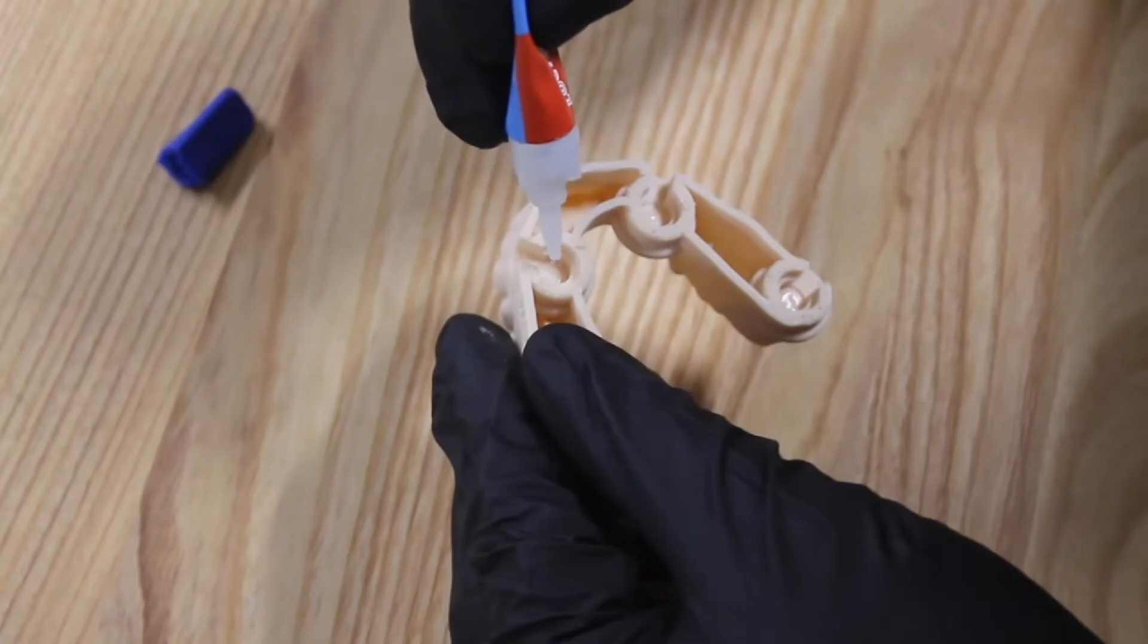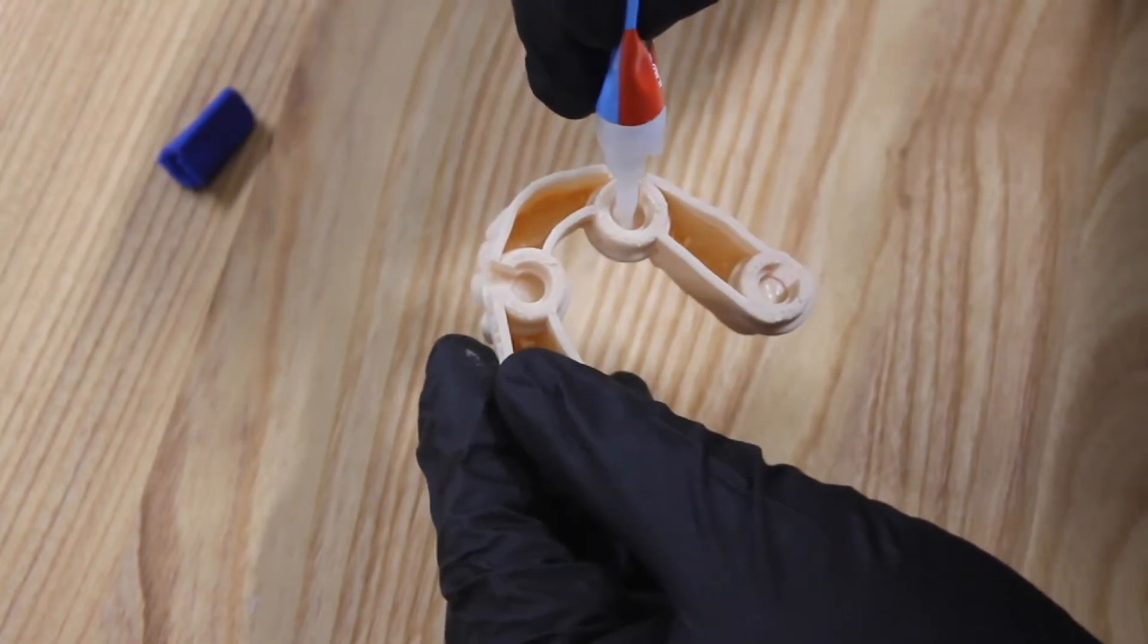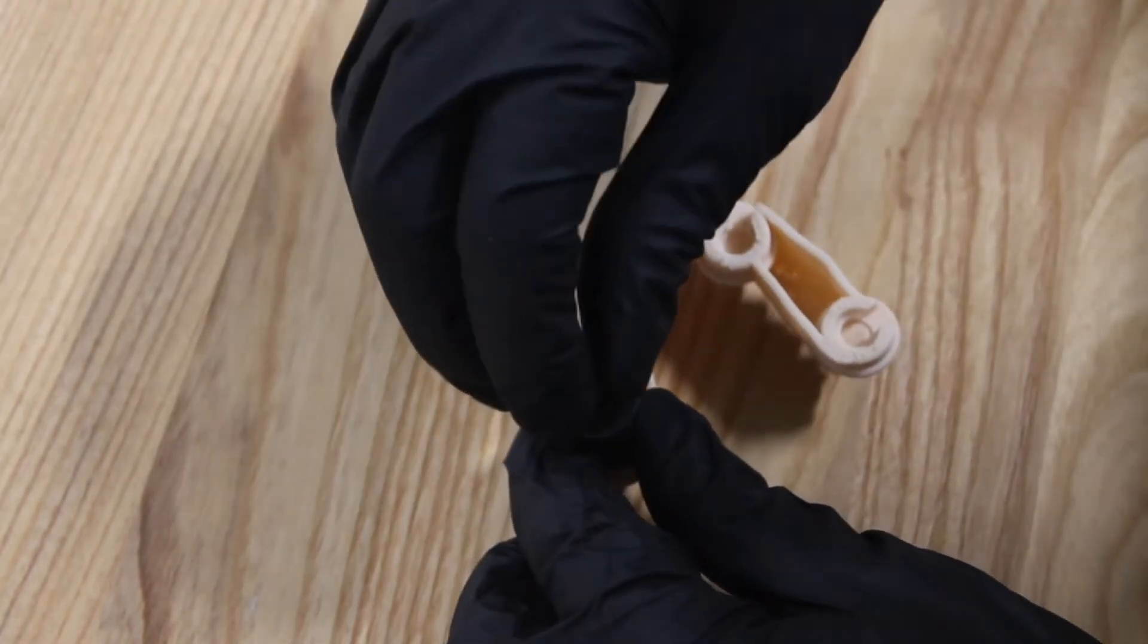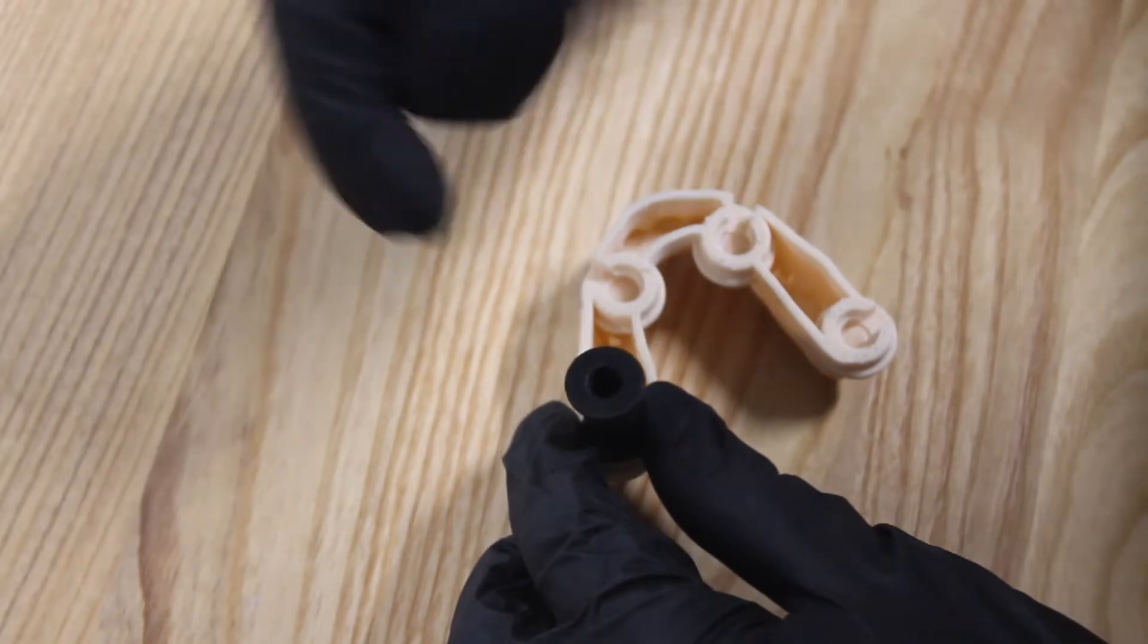Apply the glue inside the attachment, then use the glue jet tool to position the magnet with the correct pole orientation.